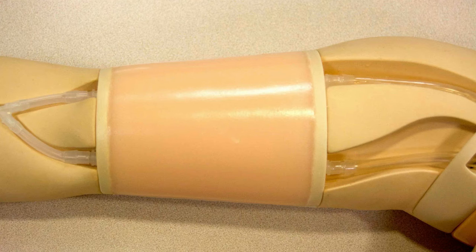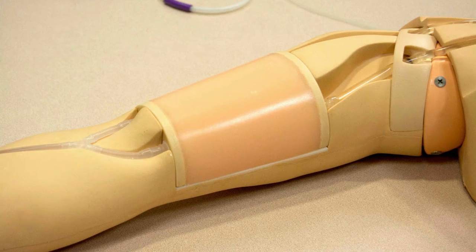This is what it looks like when it's been installed. The phantom is seated in position. You can't see through it, which is why this is going to be an ultrasound-guided procedure and not a landmark-based procedure like most PICC lines at this level of the arm. You can see that the blood vessels tie into the inserts on either end. The tubing for the blood vessel travels through the arm into the insert, out of the insert, and through the articulation points in the shoulder.